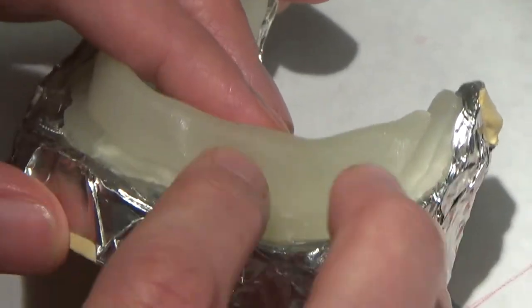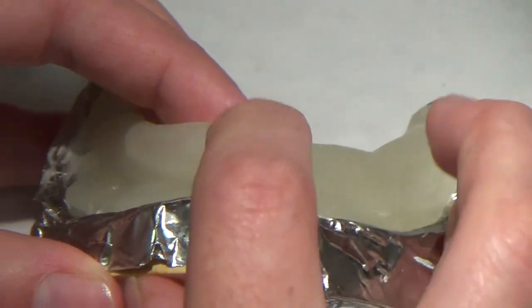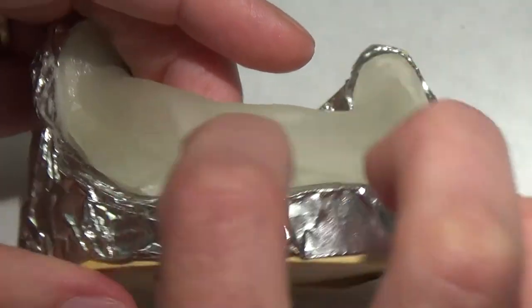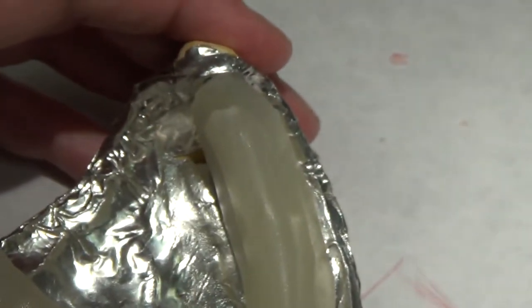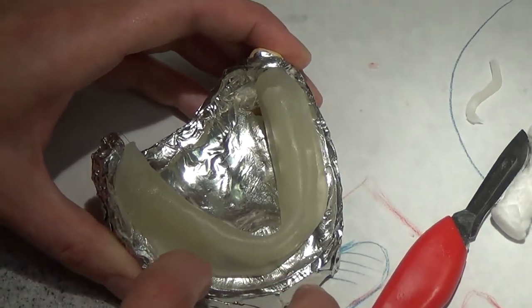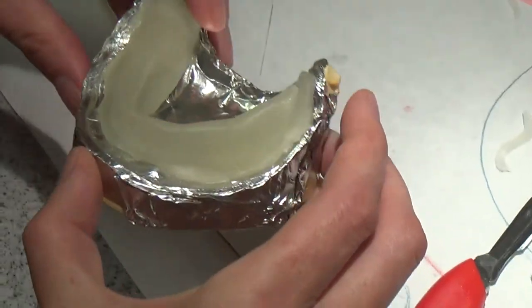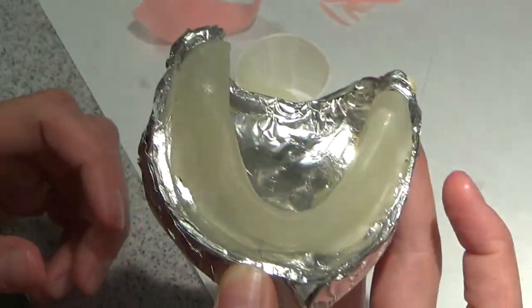I'm trying to keep this at an angle you all can see. I'm just pulling the new material onto the top of the old material. I'm using a little Vaseline — you can also use water, I actually prefer water, it's cleaner. I'm going to shape my edges a little bit, and now I can cure this. Intentionally avoiding that undercut in the back.